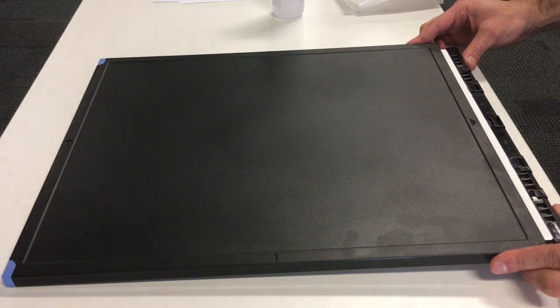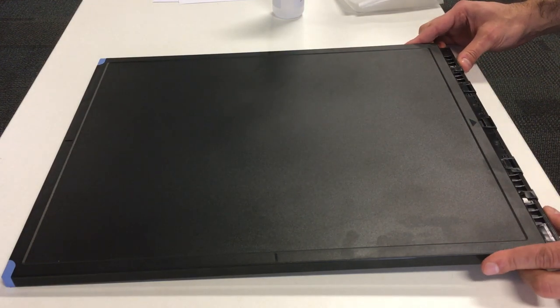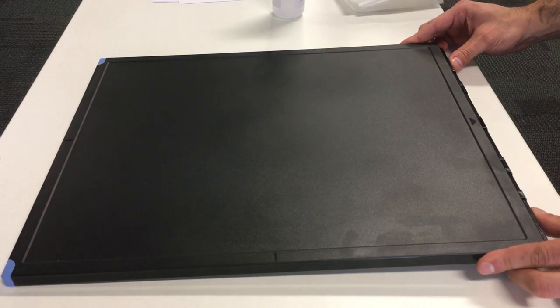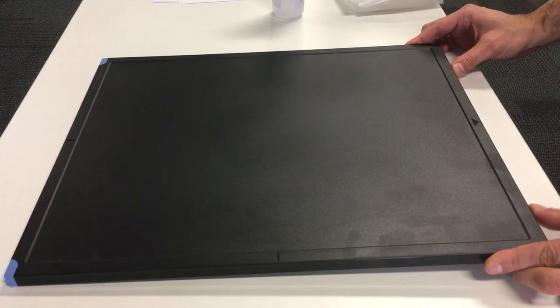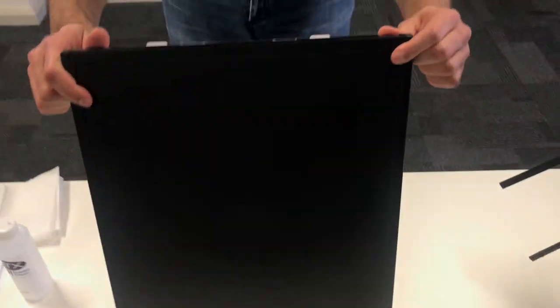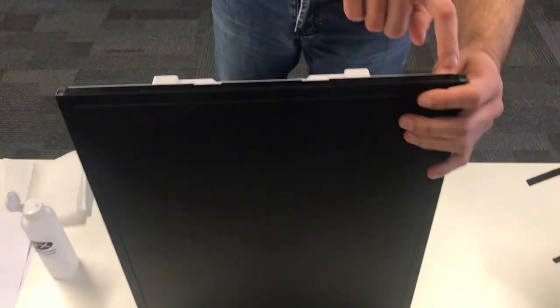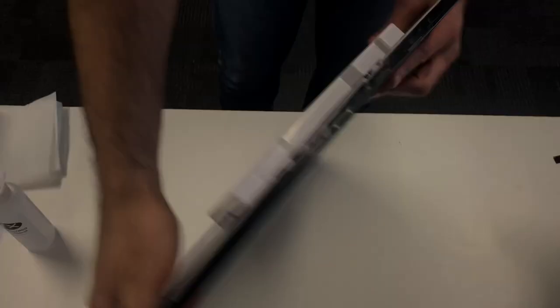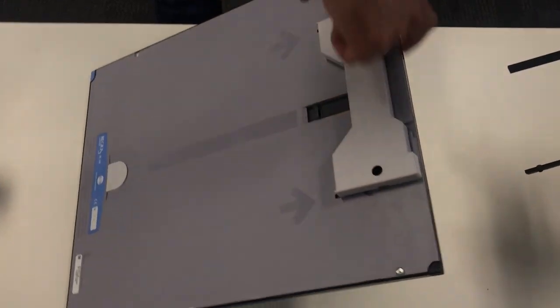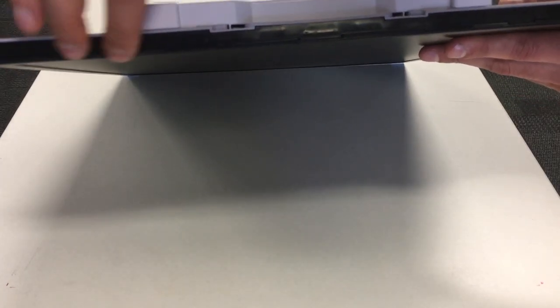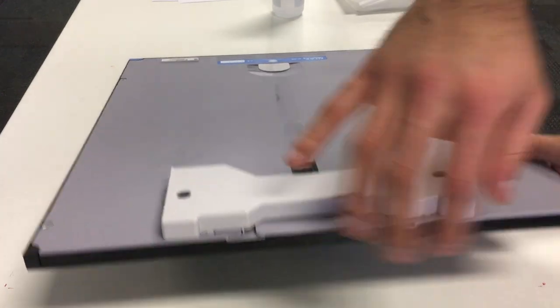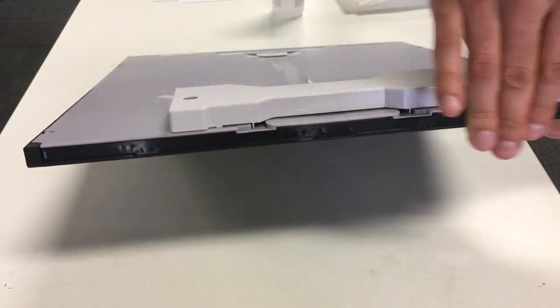And then we push the cassette again. The entrance. So at this stage, you shouldn't see any gap here. There shouldn't be any gap. I cannot see anything at the moment. So notice I still got the tool attached as well.